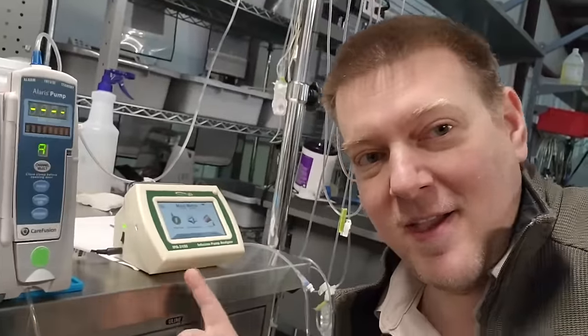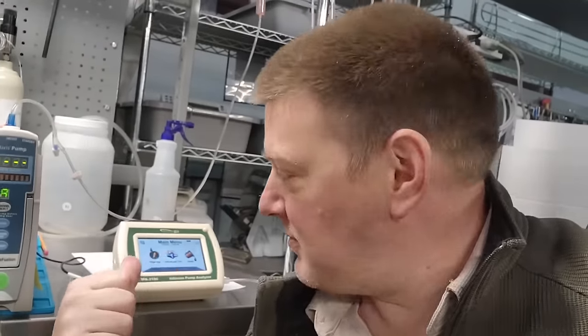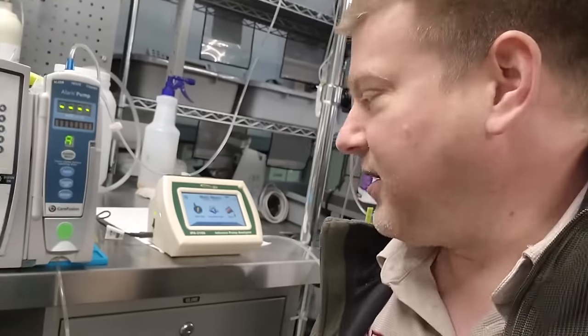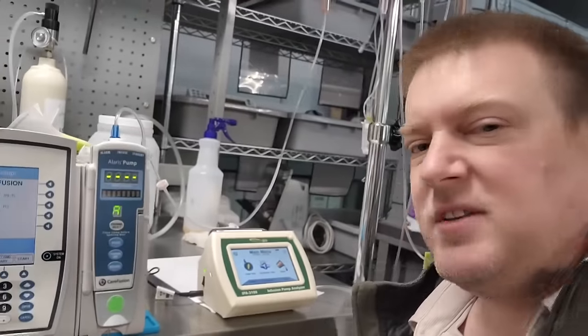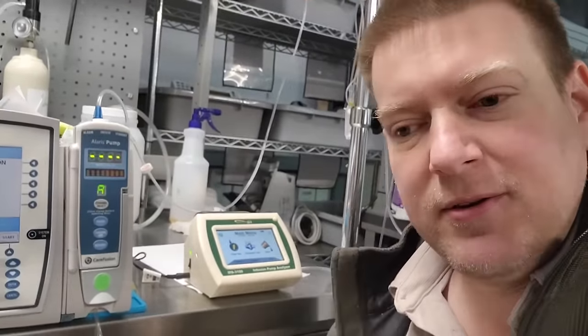Alright guys, welcome back to Better Biomed. And if you hear that alarm, you know that we're working on infusion pumps today. And today I have the newest infusion pump analyzer to the market, which technically it's not even on the market yet. This is a prototype, still almost ready for market.